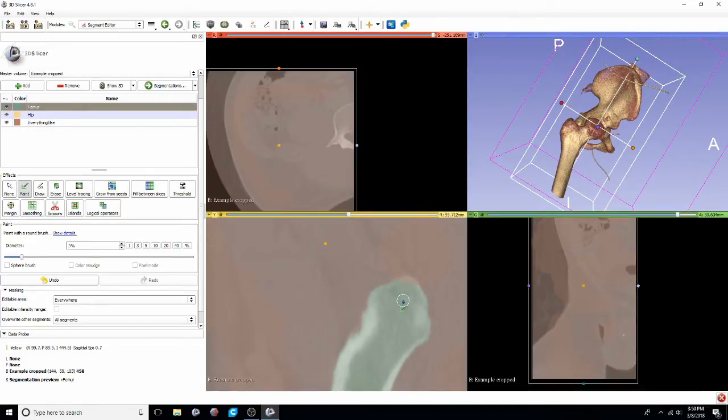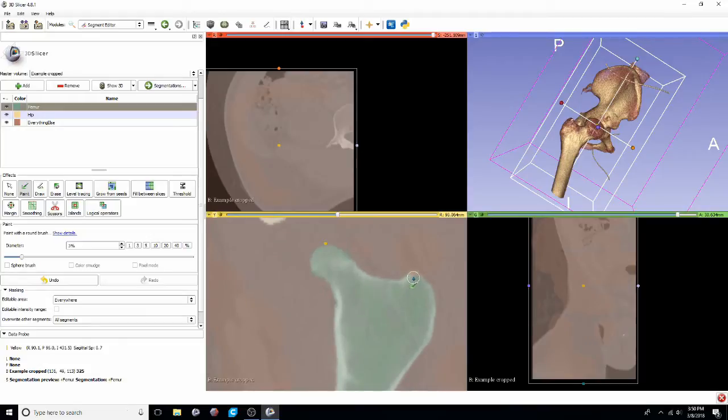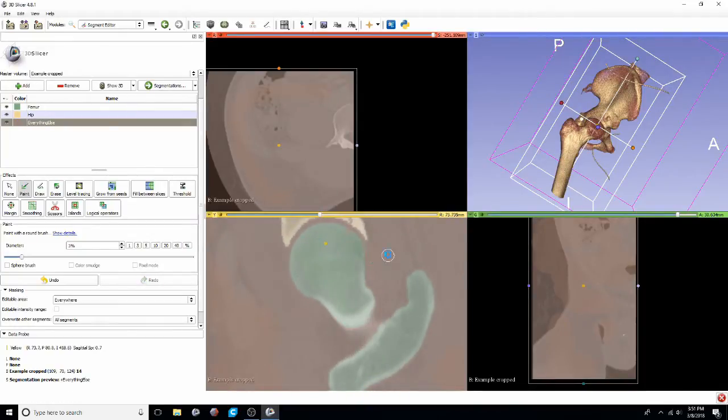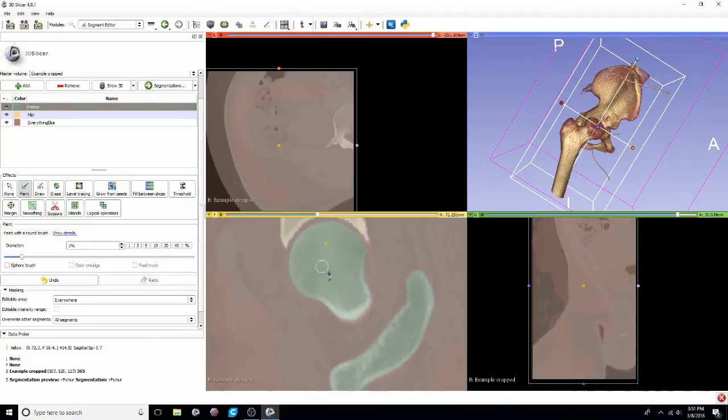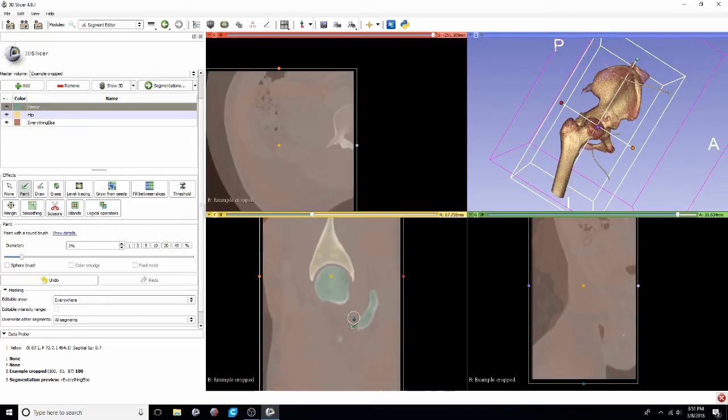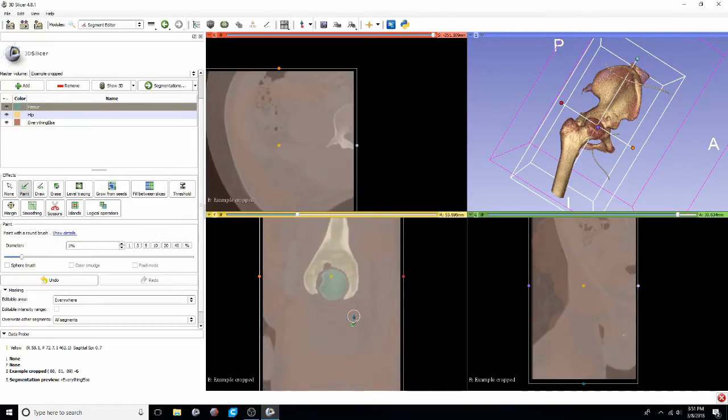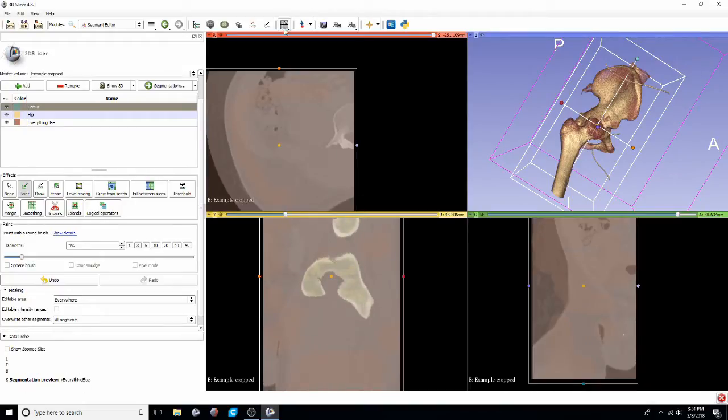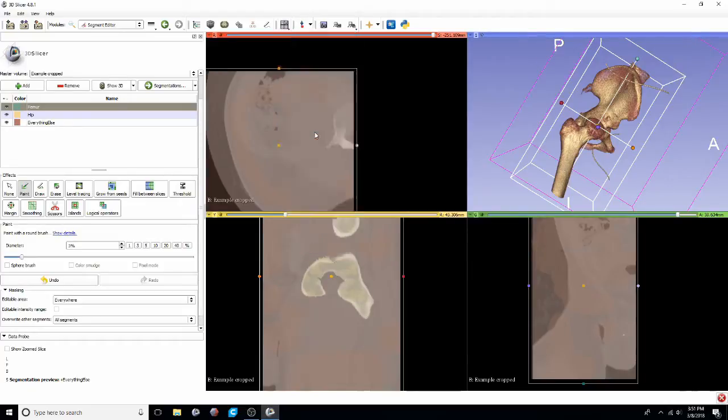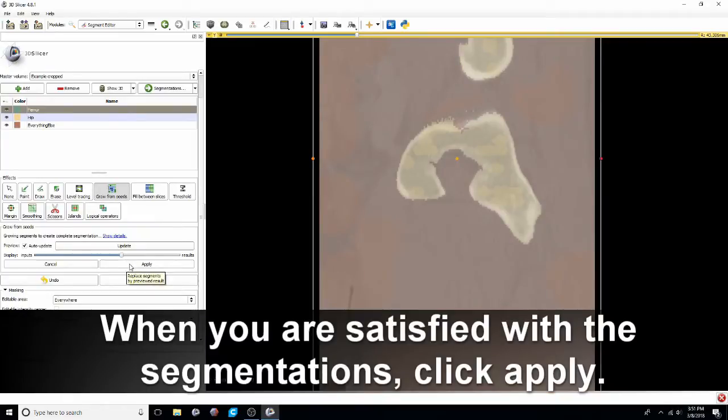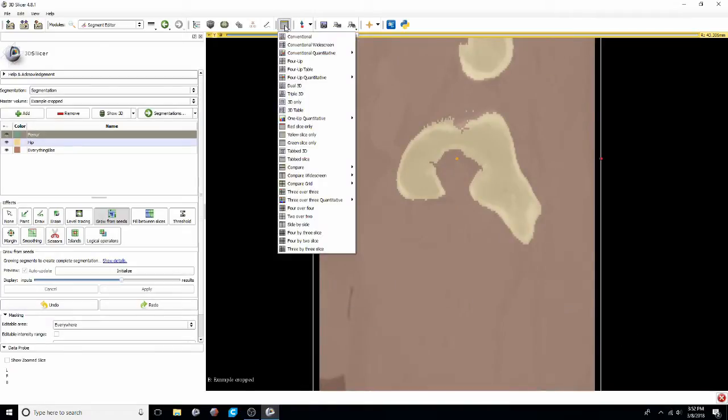that bony structure is in fact part of the femur. This process is sped up on the video just so that you don't get too bored. But know that all in all an average segmentation of a hip and a femur takes maybe 30 minutes or so, probably a little bit less as you become more experienced. We'll scroll through this view one more time to make sure that we're pretty happy with the way everything segmented. I've found that this next step is sometimes pretty computationally heavy. So going to one of the views sometimes makes the computer freeze a little bit less. We'll go back to the grow from seeds and then click apply. That's going to finalize those label maps that we've created.